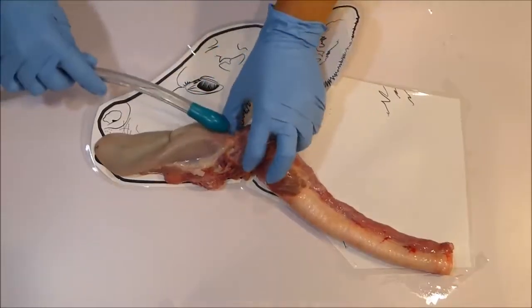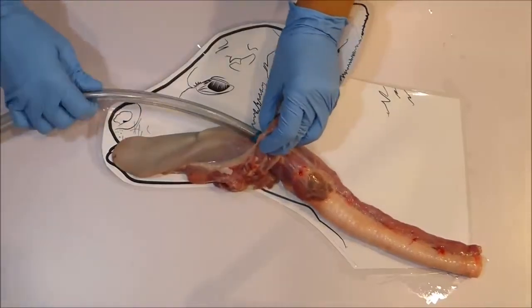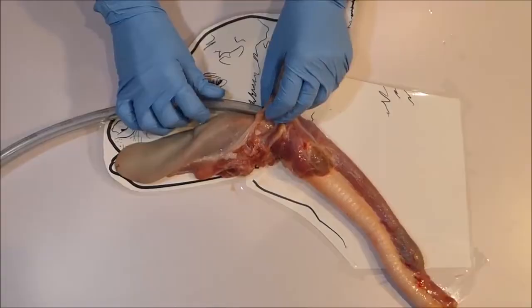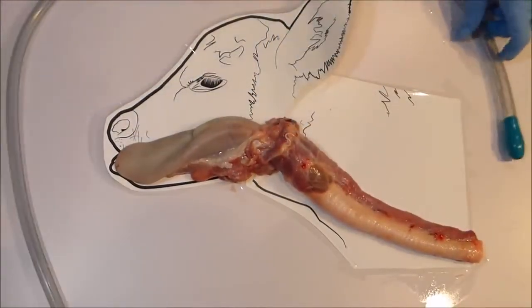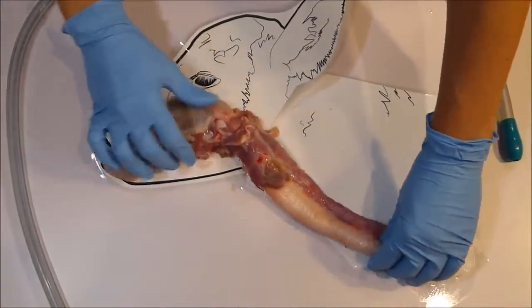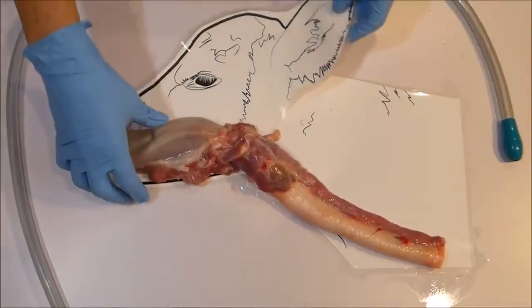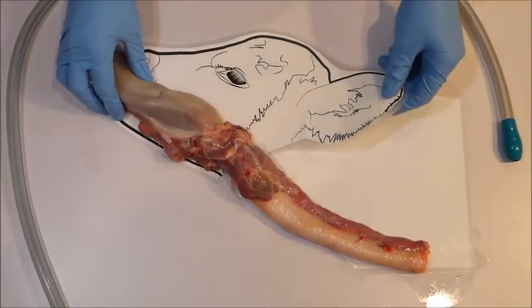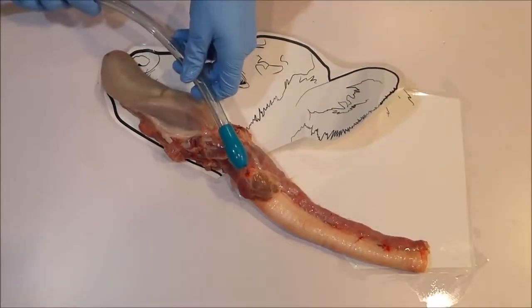So passing a tube into the airway is very easily avoided provided you work with your calf's natural reflexes. As you can see, the airway is below the esophagus. So the easiest way to avoid the airway altogether is not to force the calf's nose upward. If the calf's nose is forced up and the tube is forced down, you might encounter the airway.